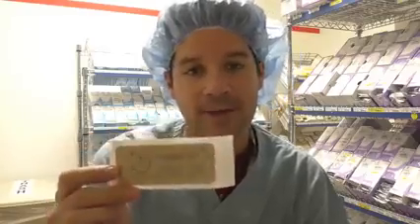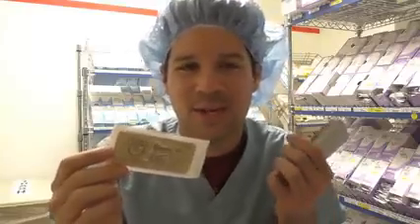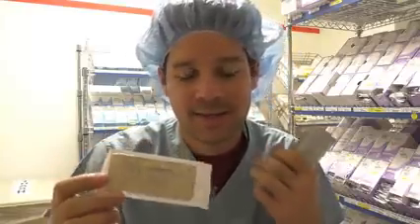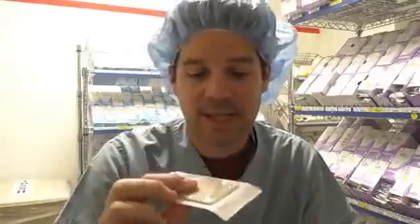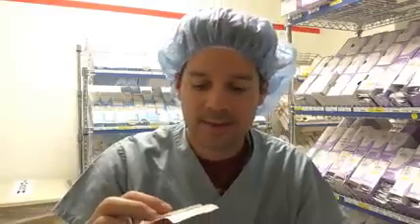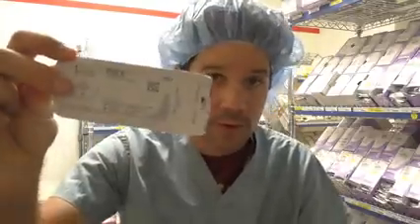When you open up this package, it has a very pungent smell. It sits in this alcohol type solution, and it says chromic gut because it's actually made from the intestines of an animal, and it's just got a very interesting smell. This is highly absorbable, which is fantastic, and where I've seen this used mostly is circumcisions actually, and peds, stuff like that. Chromic.